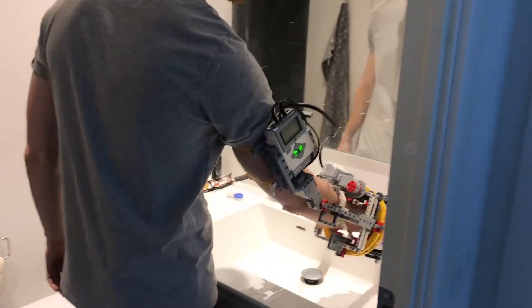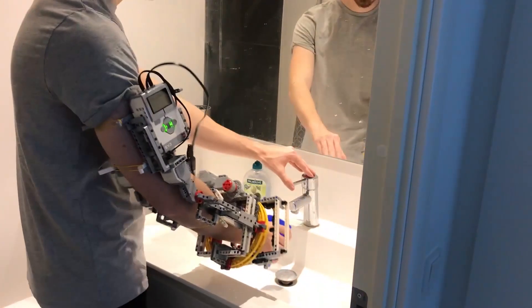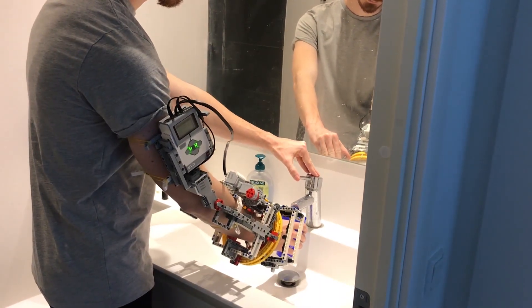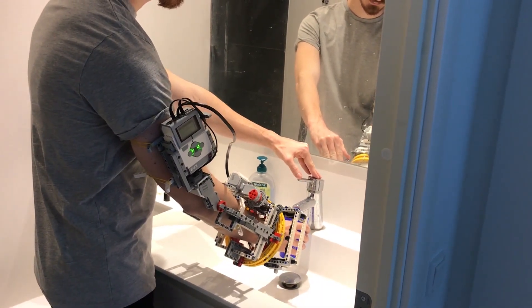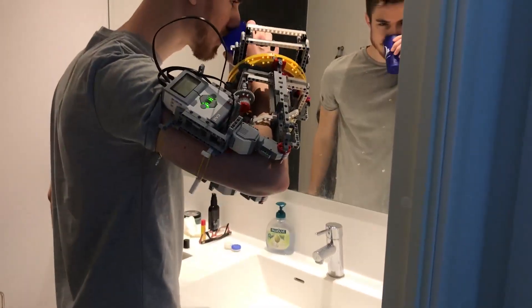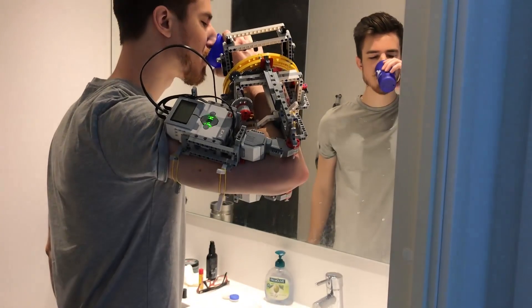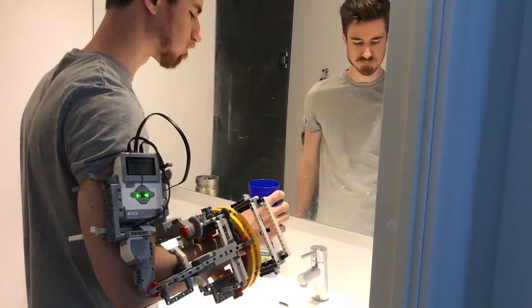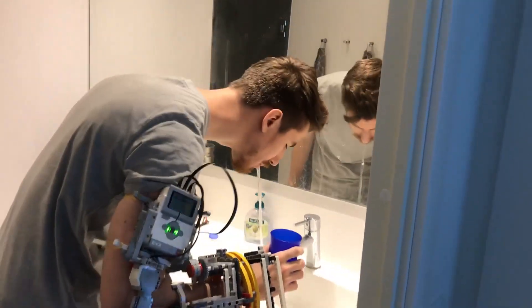The exoskeleton and trained AI will be able to assist in moving the paralyzed arm to complete an activity such as tooth brushing, by sending triggers to the motors on when and how the patient needs to move next.